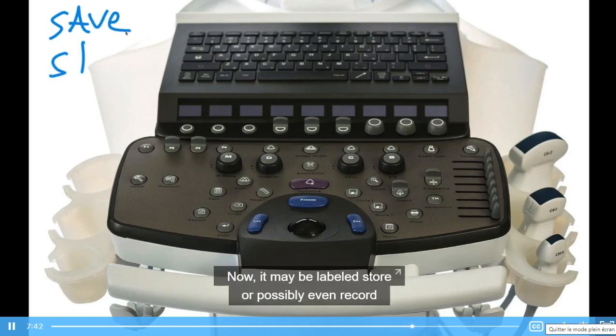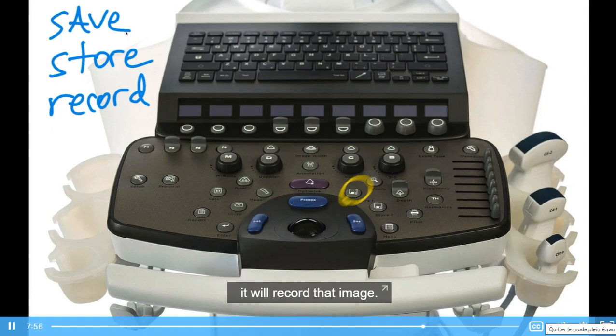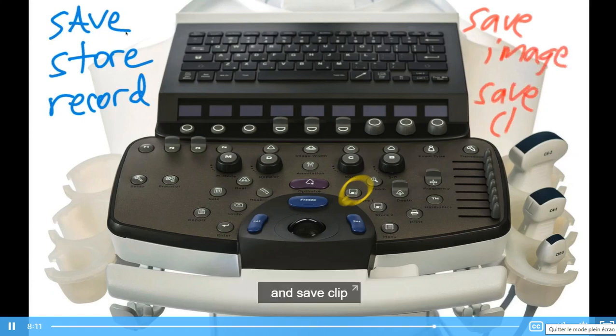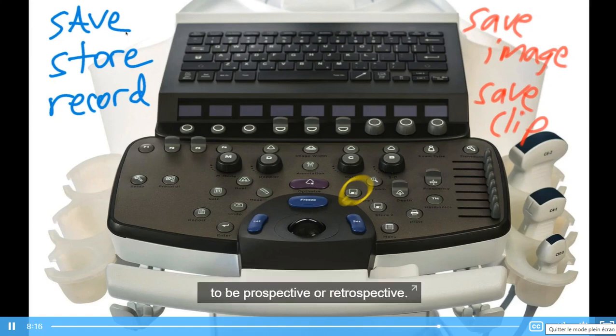The last button I want to discuss is save. Now, it may be labeled store or possibly even record. And on this machine, it's one single button. You hit this button that looks like a floppy disk. If the image is frozen and it's a still image, it will record that image. If you are live scanning and you're not frozen and you hit that, it will record a clip. Now, on some machines, this will be save image and save clip, or it might just be labeled clip. And you can actually change the clip settings to be prospective or retrospective. You can change the amount of time that the clip saves for, etc.